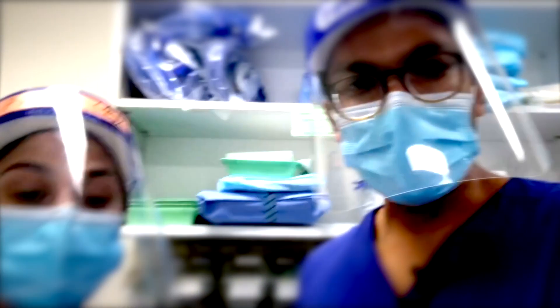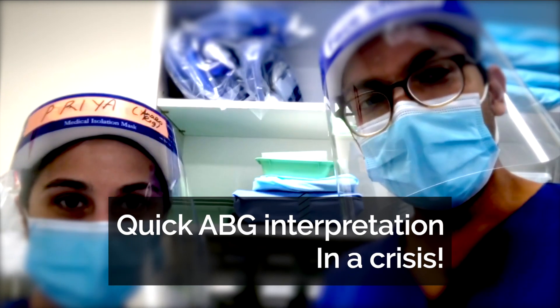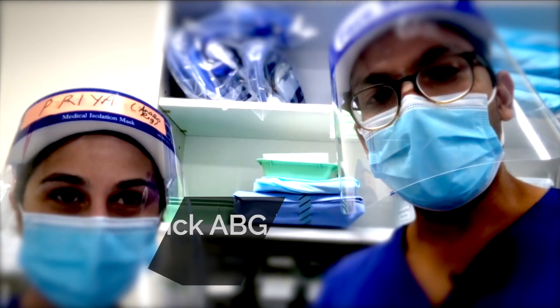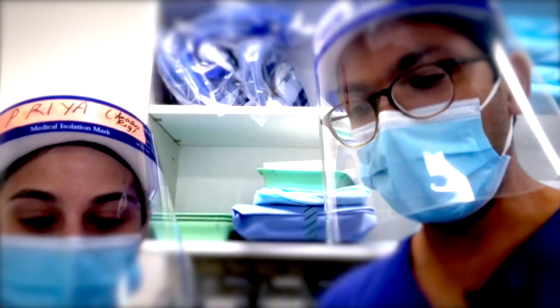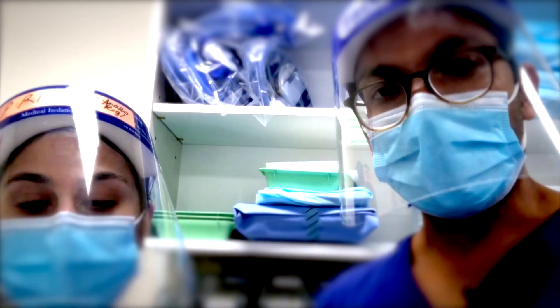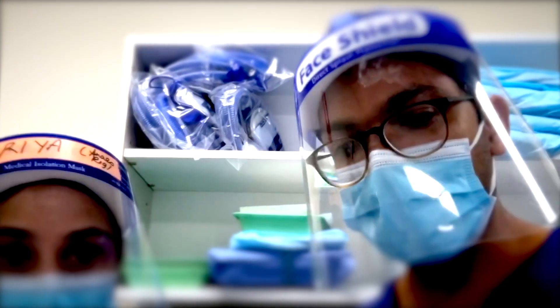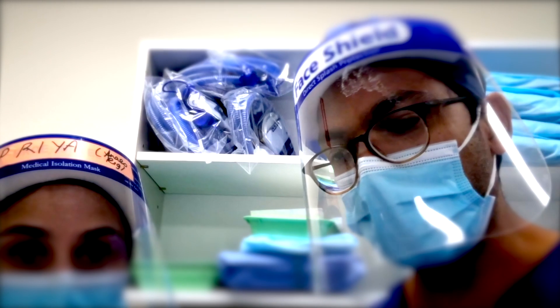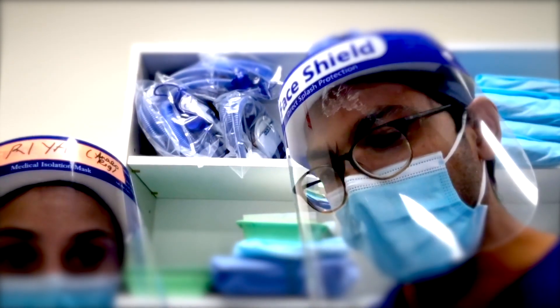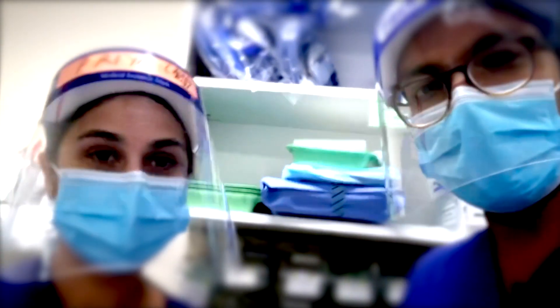Hi everyone, this is Lahir from ABCs of Anesthesia. Today we're going to go through a blood gas — not in super detail, but the way an anesthetist looks at one. Everything is time critical, so we need a quick grasp of the life-threatening issues and treat them straightaway. This blood gas is from an 84-year-old with a fractured neck of femur having a hemiarthroplasty, with liver disease and previous cardiac disease.